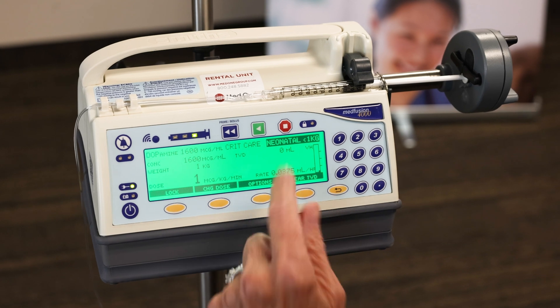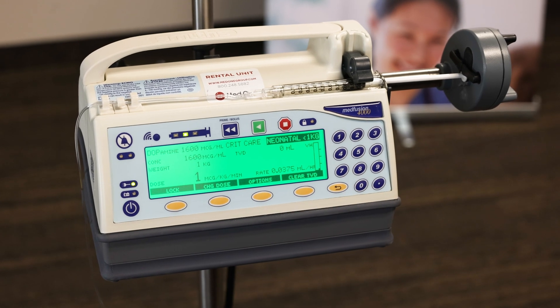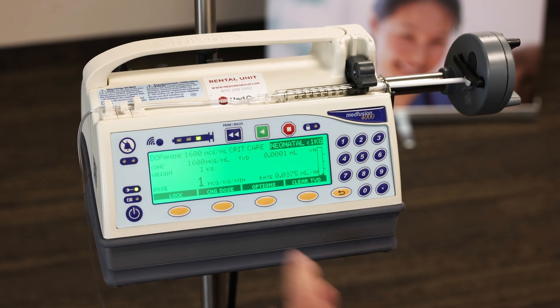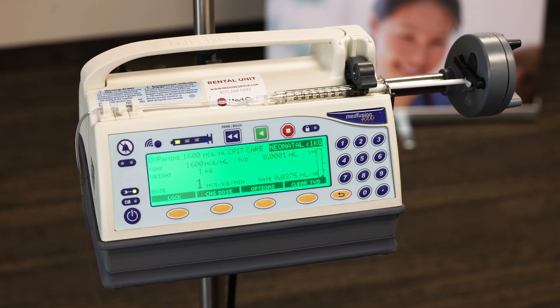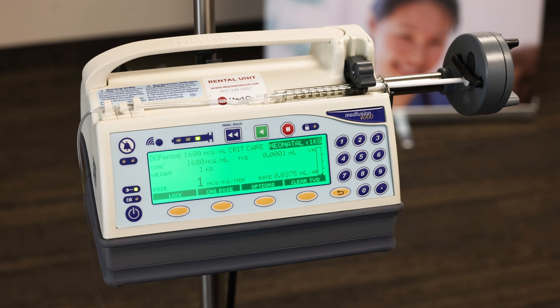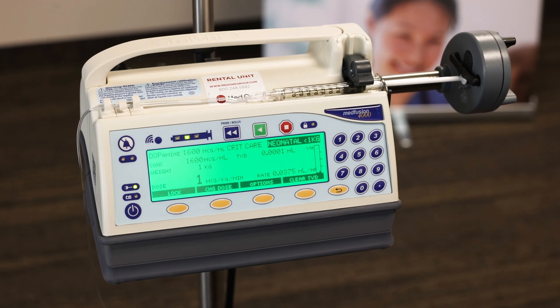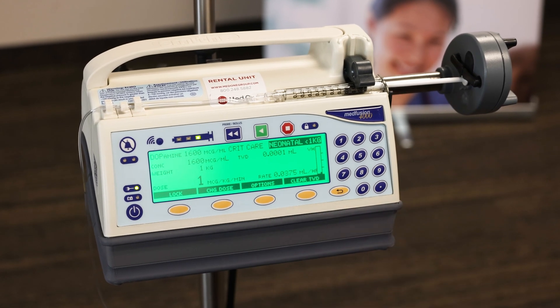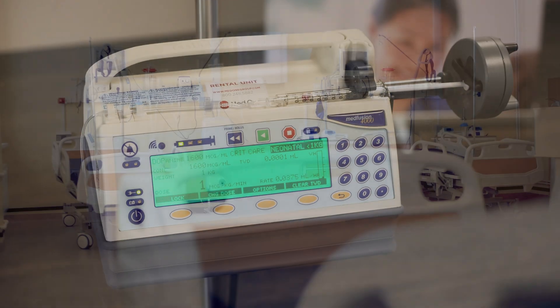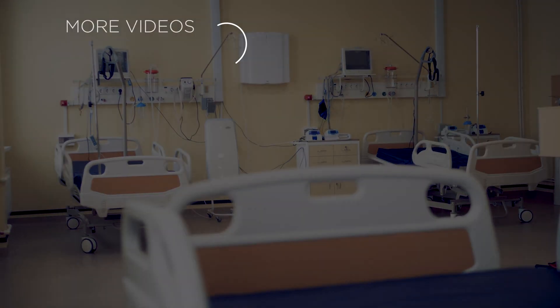You have the name of your drug — we're in the neonatal profile. You see the concentration, our total volume delivered, our dose, which calculates a rate.